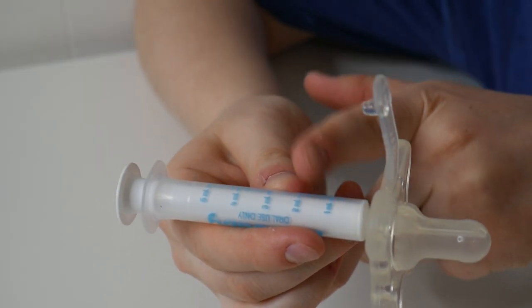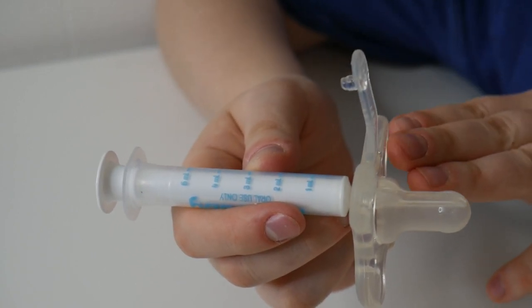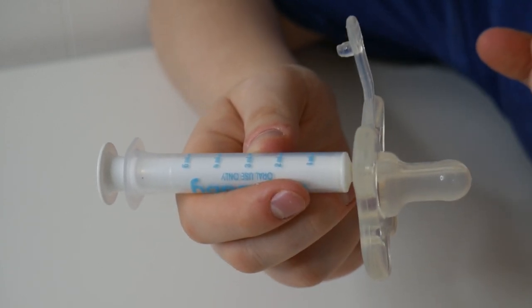It's really easy to use the syringe, so you have accurate dosing. I really like how both products here are completely BPA-free and dishwasher safe, making this super easy to clean and safe to use.